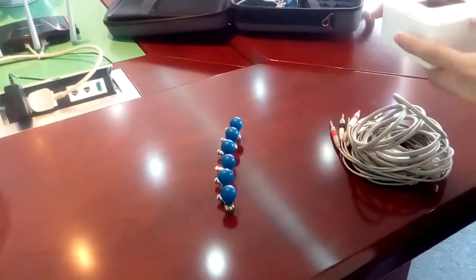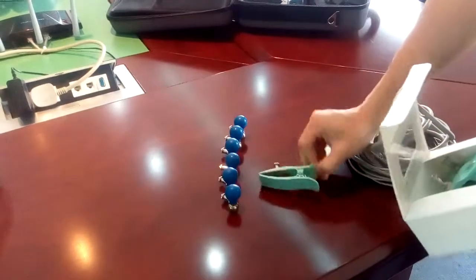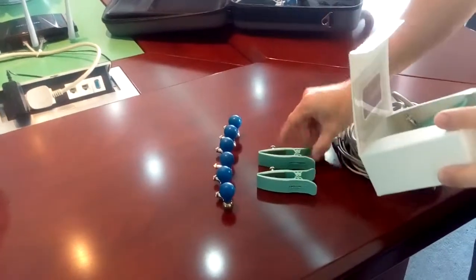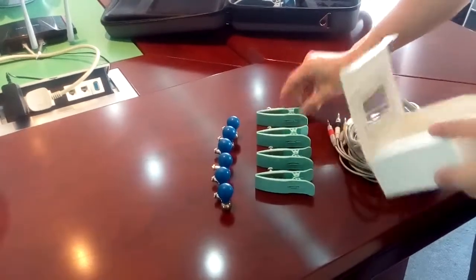You also need limb clamps, four limb clamps in a smaller size.